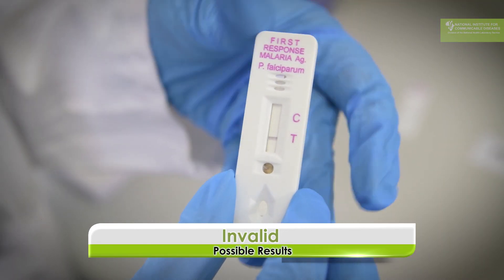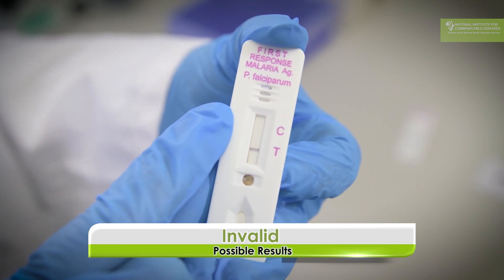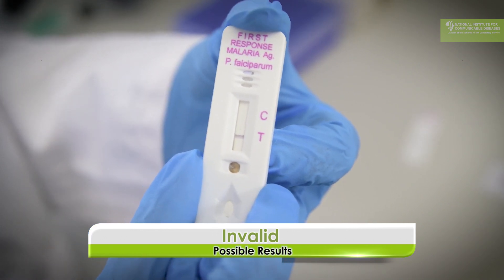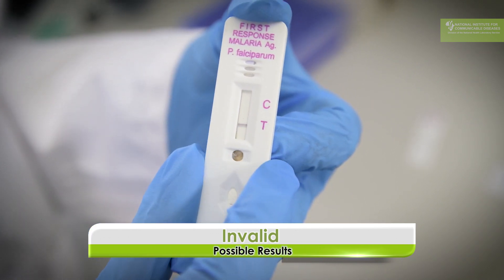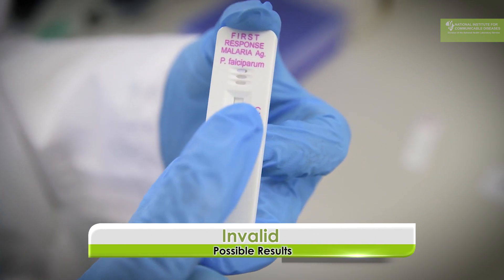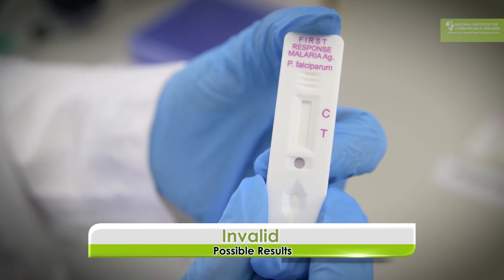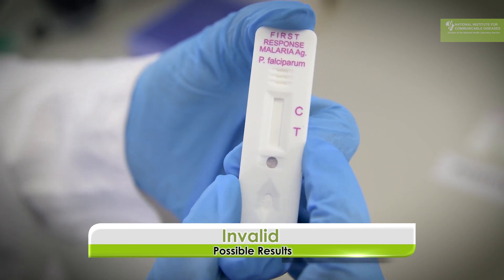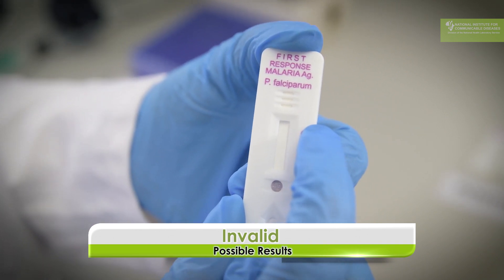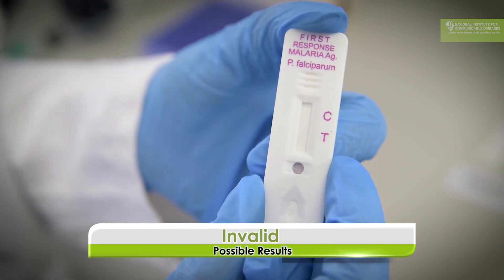This test is called invalid because while a test line has come up, there is no control line. You cannot call a result if you don't see a control line, so this is invalid — only the test line appeared. This is another example of an invalid test because neither the control line nor the test line has come up. You can only call a test if a control line has appeared, so you must call this invalid and repeat the test.